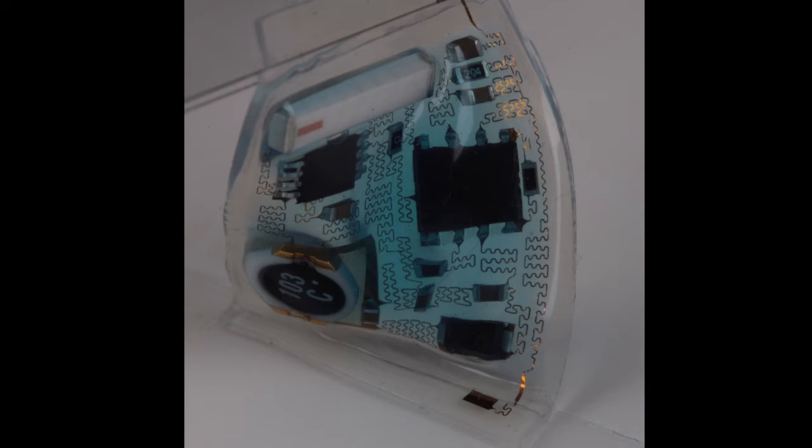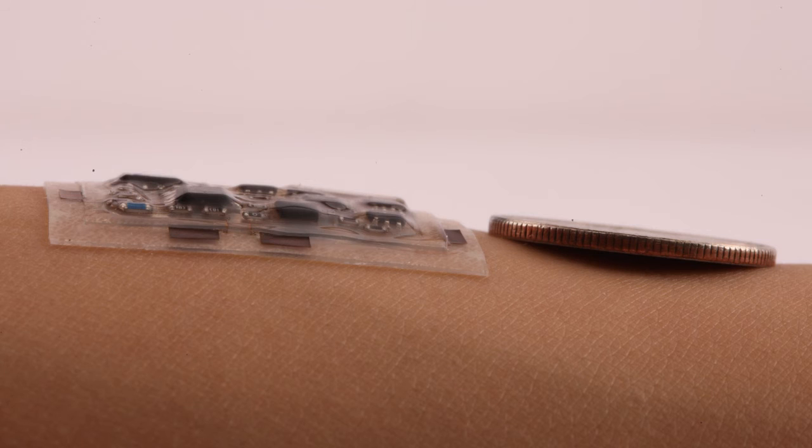Elastic devices that adhere comfortably to one's skin and wirelessly monitor electrophysiological data. Such technology has the potential to provide continuous hospital-quality health monitoring beyond the confines of a clinic.